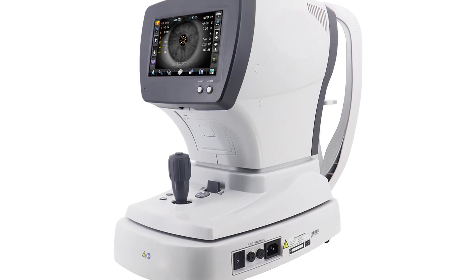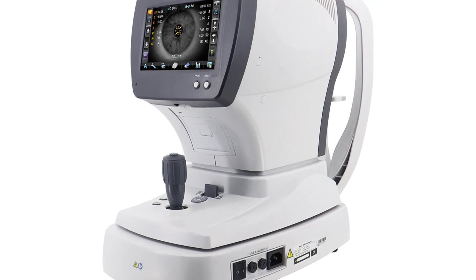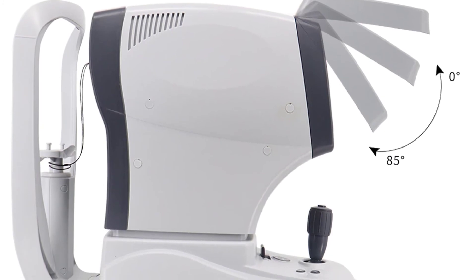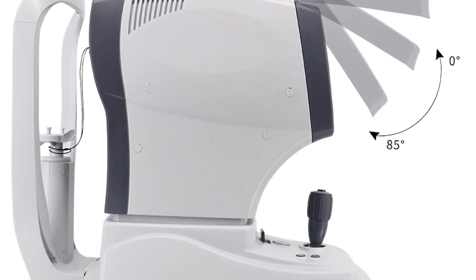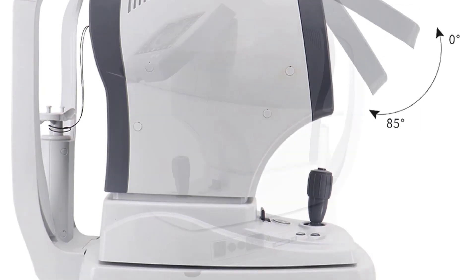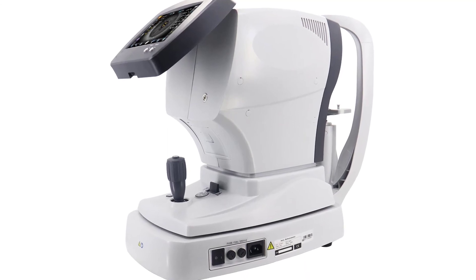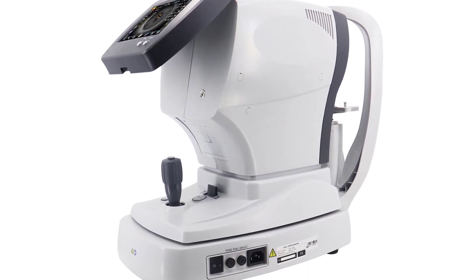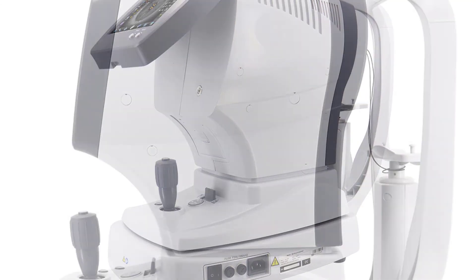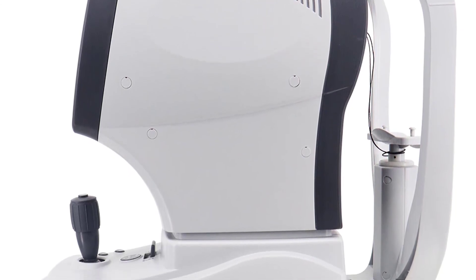It is used by professional optometrists, ophthalmologists, and people with myopia, hypermetropia, and astigmatism to monitor their eye conditions and for self-discovery of refractive error. The FA6500K measures the refractive index of the anterior segment of the eye, the refractive state, and the corneal curvature. It is also applied to management of astigmatism. It is used by doctors, nurses, and technicians in examination of the cornea, after cataract surgery, for detection and monitoring of glaucoma, and for detection of ocular abnormalities in children.